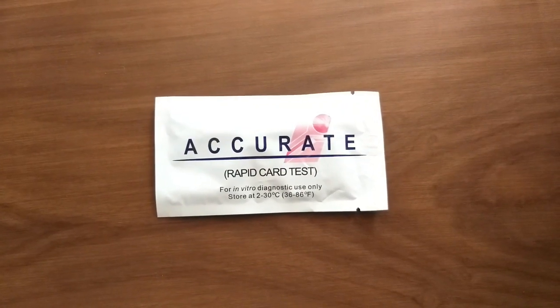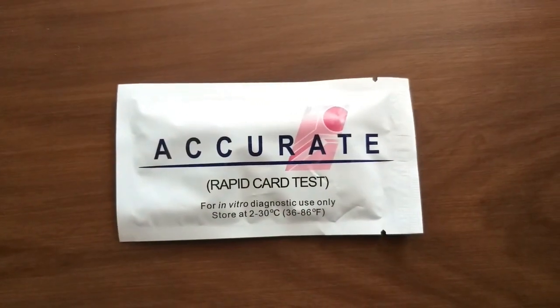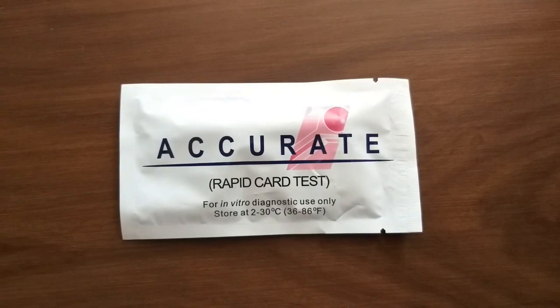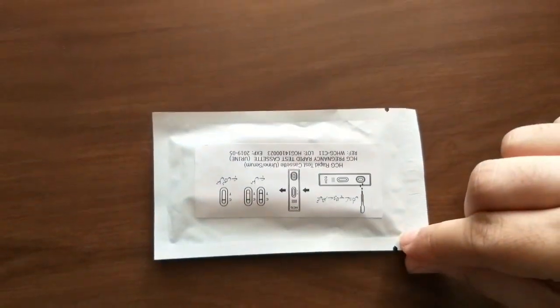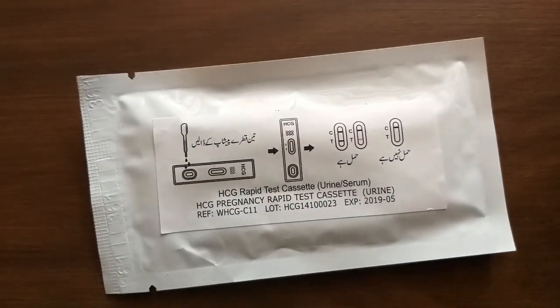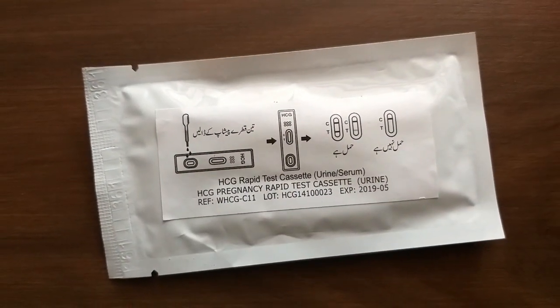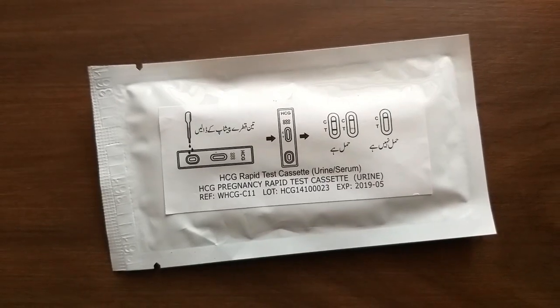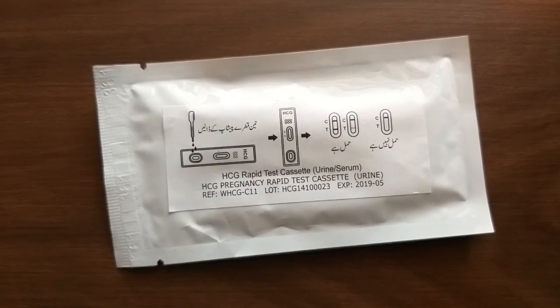To perform a urine pregnancy test, buy a pregnancy test kit like this — many pregnancy test kits are available in the market. You can see this test strip and the package; the instructions are on the packet.